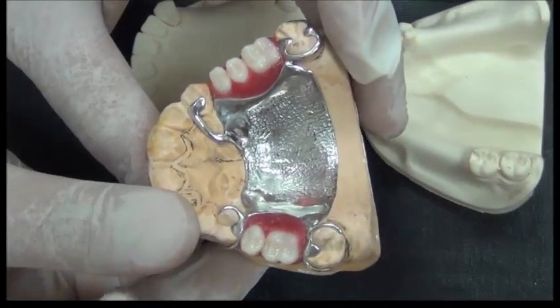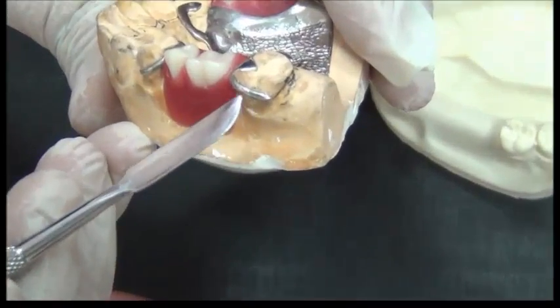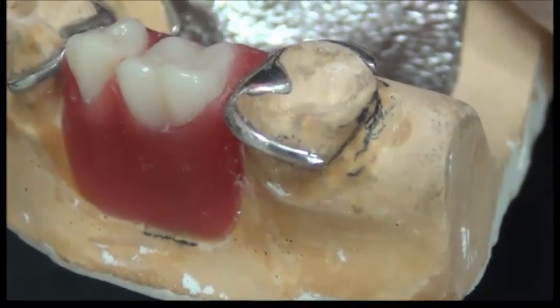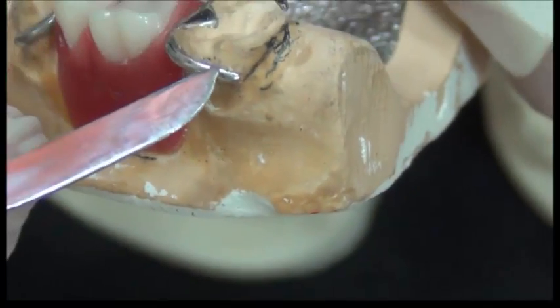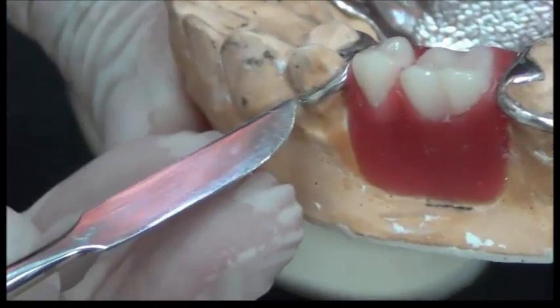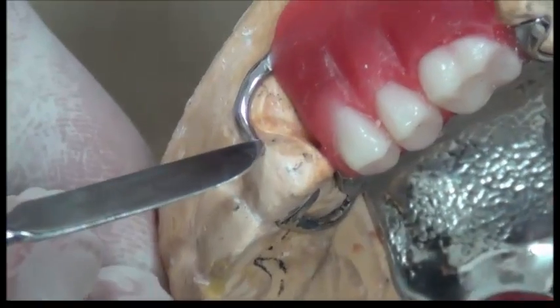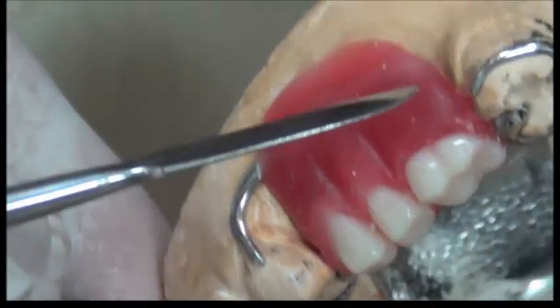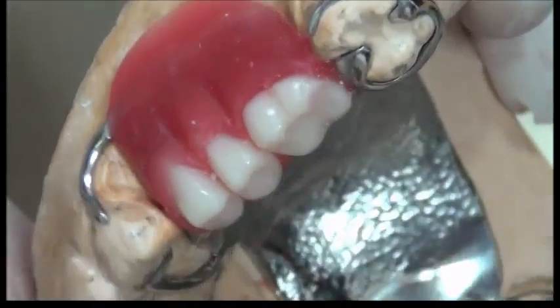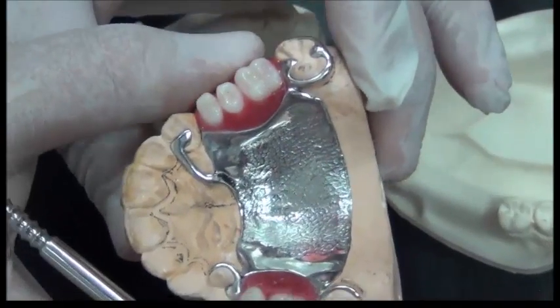To utilize these features correctly, I need, for example, to add a clasp for retention. Where do I place the end of this clasp? I need to decide where to end this clasp. Is this a correct place to put this clasp? Is this undercut sufficient for this clasp to be in function? Might I need to change the position of this clasp or leave it as it is? These decisions cannot be taken using your vision.